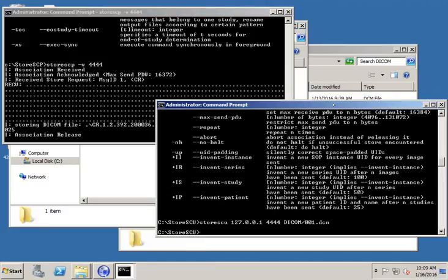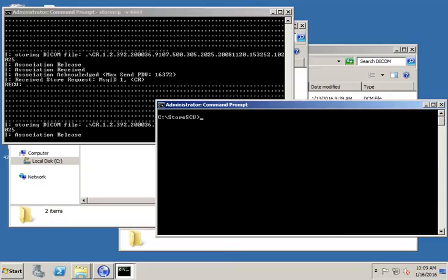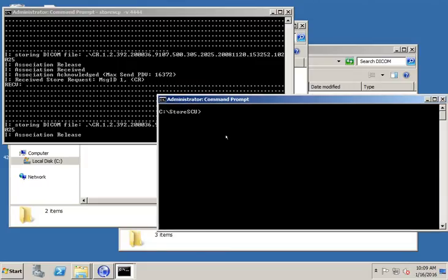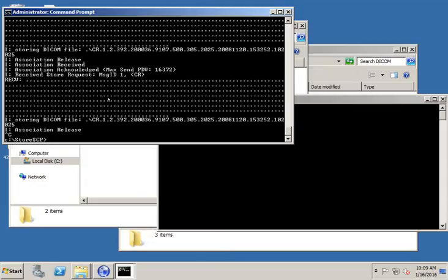Next, I have three files in there. I don't want to just send one file, I want to send three files. So let's see if we can do that. I'm just going to run CLS to clear the screen here to reduce some of the clutter. I can't do that over here, otherwise I'll be killing the listener. By the way, if you do want to kill the listener, you just hit Control-C. Control-C will stop your listener. I'm going to hit the up arrow key to start it back up again, though.